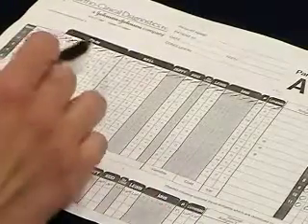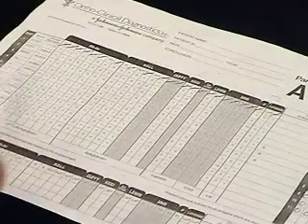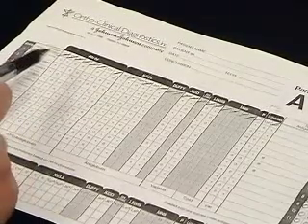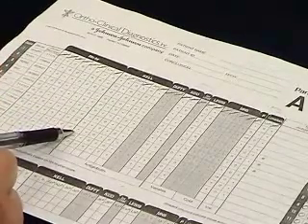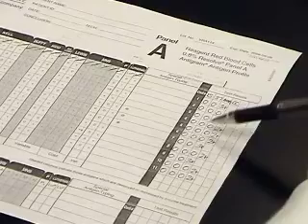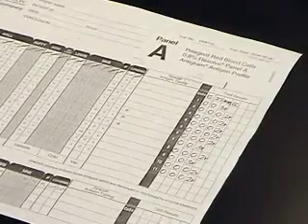After we have ruled out everything possible, we need to look at what antigens remain. In this case, the only antigen of concern is Kel. In order to prove that Kel is here, we need to look at the pattern of reactivity. Kel is present on cells 1, 7, and 9 only. If we head over here to where our test results are, we notice that we have positive reactions on cells 1, 7, and 9. Therefore, at this point, we can identify our antibody as anti-Kel.